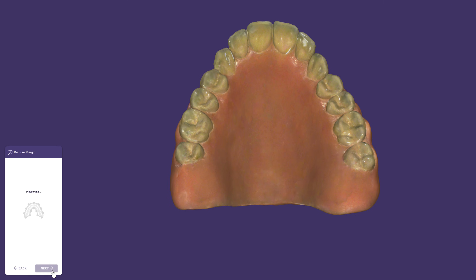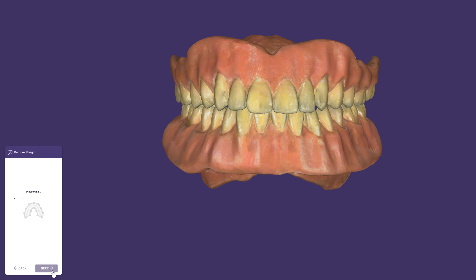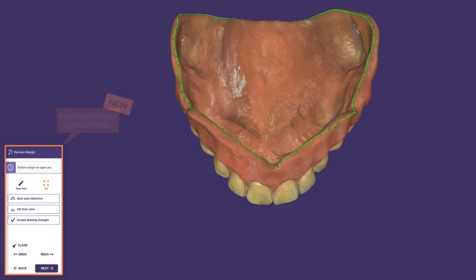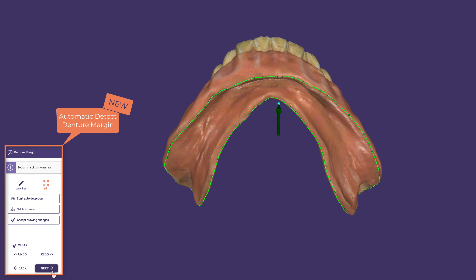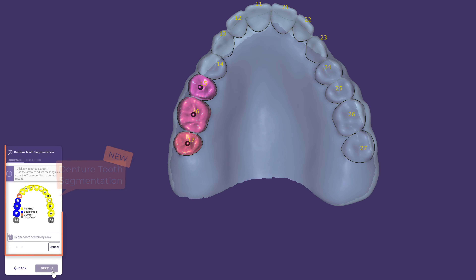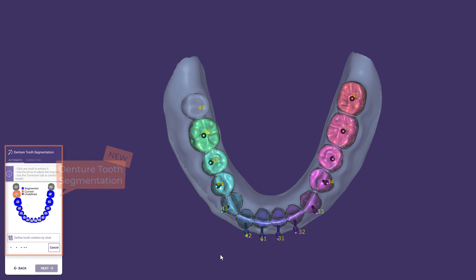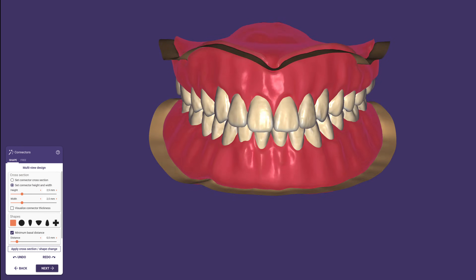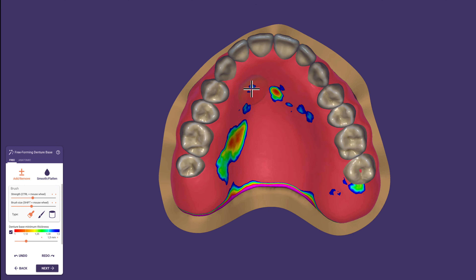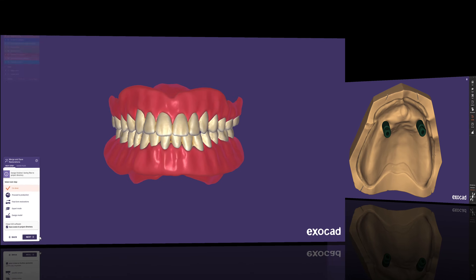Reproducing the patient's existing denture with a new anatomical situation in a highly automated workflow will blow your mind. The margin line for both dentures will be detected automatically, then the new multi-tooth segmentation kicks in to detect teeth and gingiva. This allows you to customize the existing setup with ease, and both can be free-formed individually. Instead of relining an old denture, this is how you rapidly and inexpensively produce a new set of dentures in minutes.